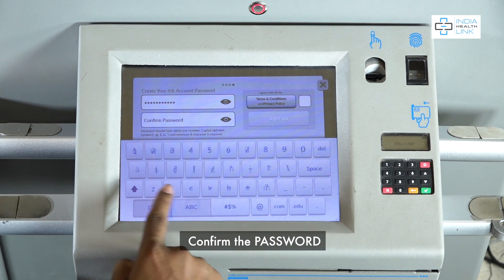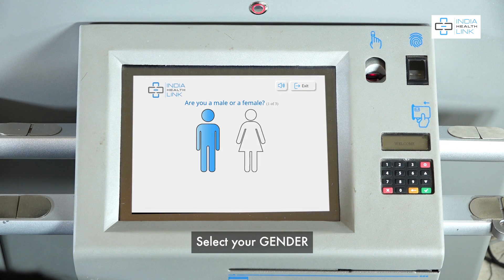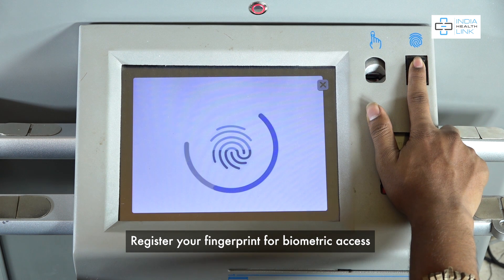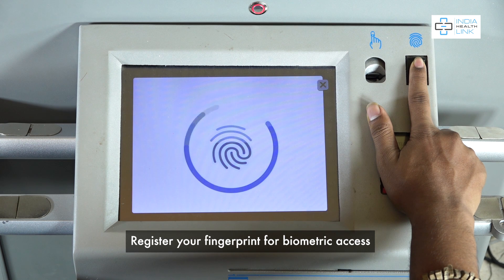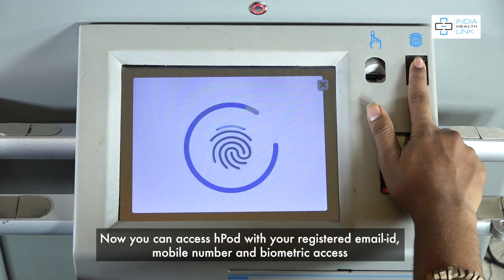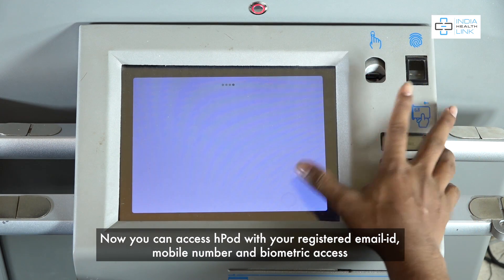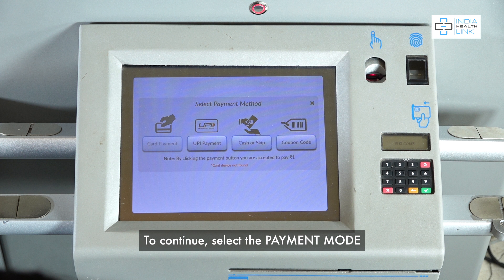Enter your First Name and Last Name, create a password, and confirm the password. Select your gender and enter your date of birth. Register your fingerprint for biometric access. You can then access HPOD with your registered email ID, mobile number, and biometric access.